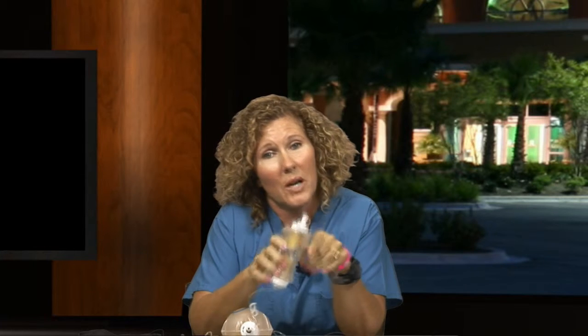Depending on the rate we have decided it is going to run at, you will last with this pump about three to four days. When it is empty, it will look like an apple core — it will be sucked down on itself, like a hard apple core. You may also notice returning feeling in your lower leg because it has run out. If you're starting to feel a pins and needles sensation, it means it is probably running out, and at that time you can remove the catheter.